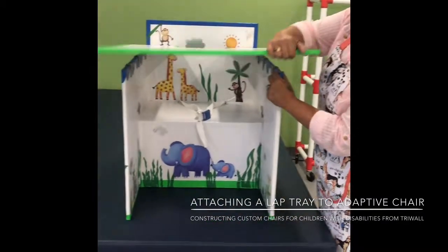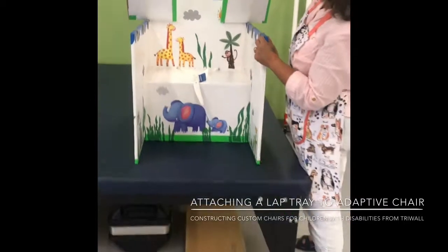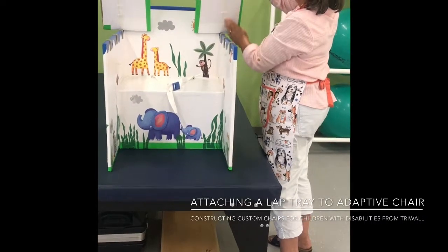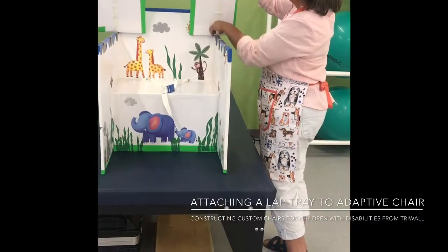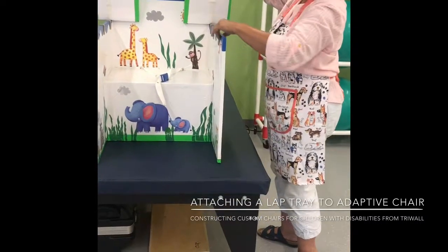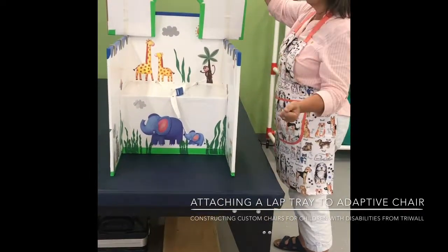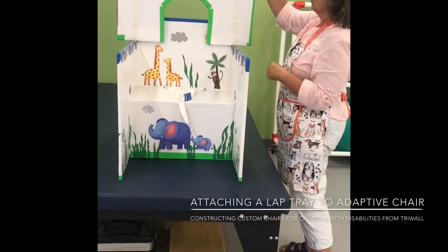This particular child was probably moving around a lot, so the therapist chose to put one big long strip — it would be the same process. You can take one big long strip and attach it to the velcro and then peel it off. But for the most part, little pieces will work.